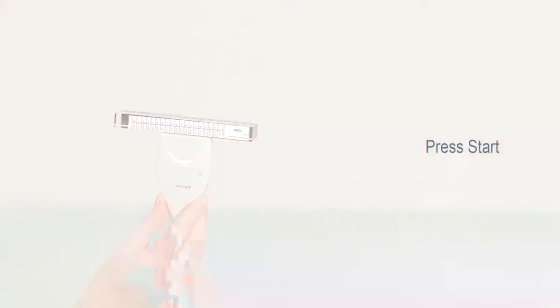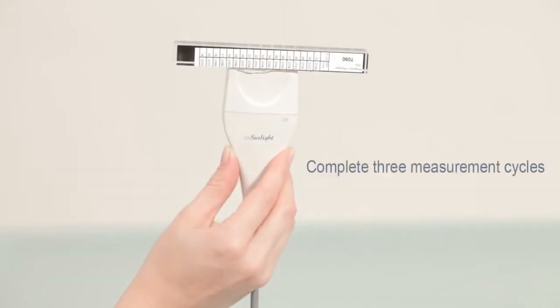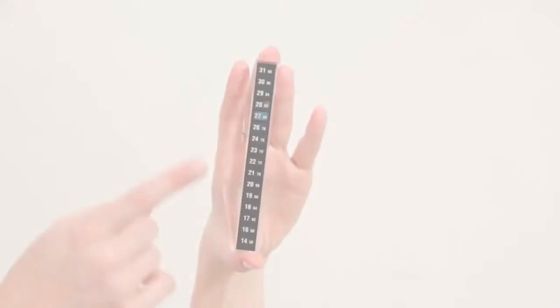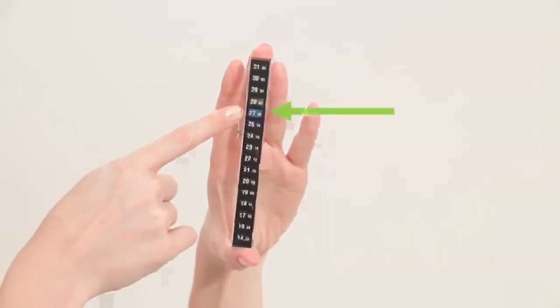Begin measurement by pressing the start button and complete three measurements. When the measurement is complete, read the phantom temperature. This is indicated by the value of the green color.